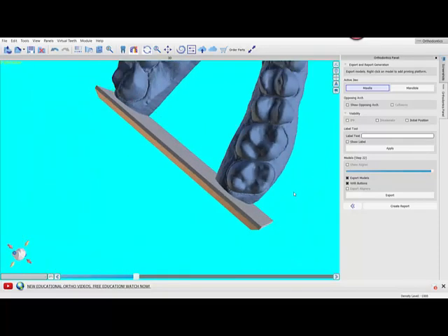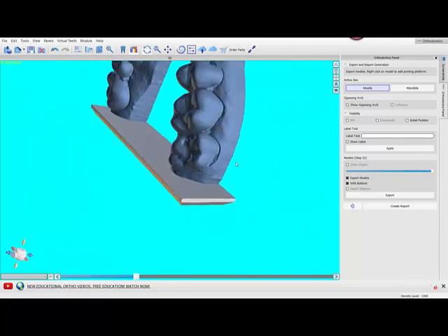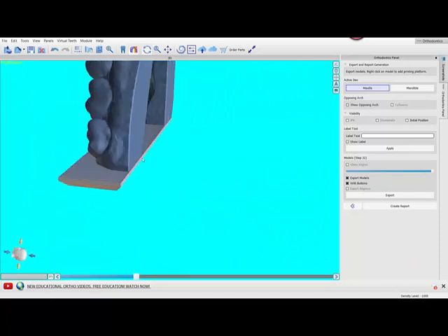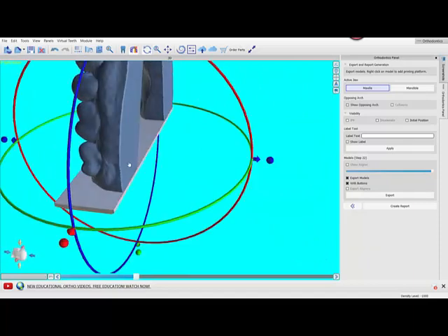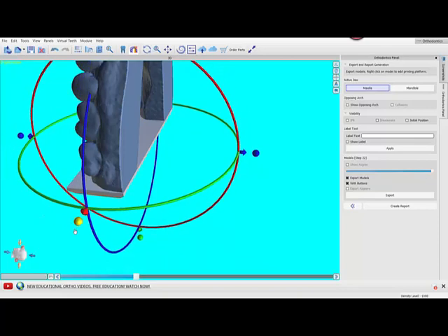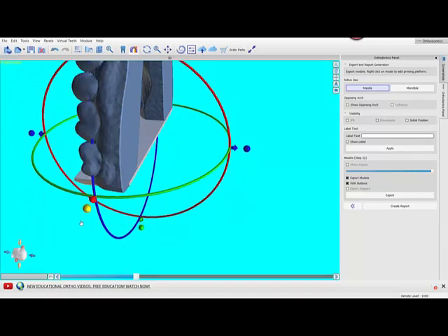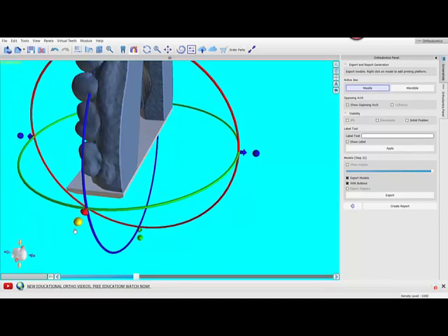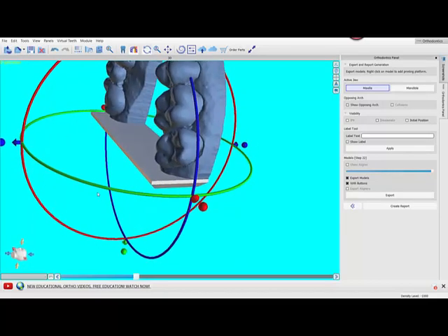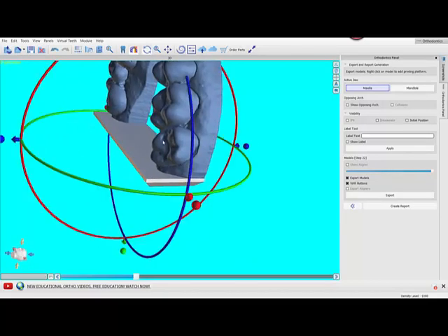Lastly I'm going to scale on all dimensions. It usually comes in pretty good on this side but I want to bring this circle in. I don't need it to be—I don't want to be way past it. Pretty close, maybe two-tenths of a millimeter sticking out is fine.